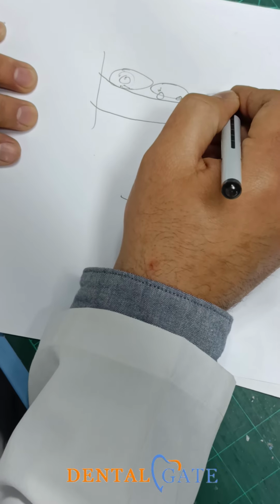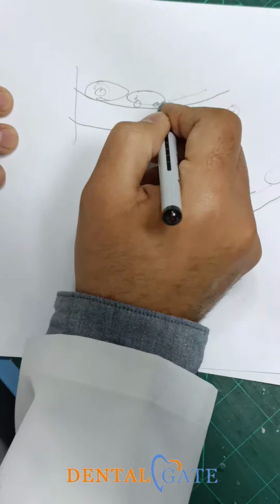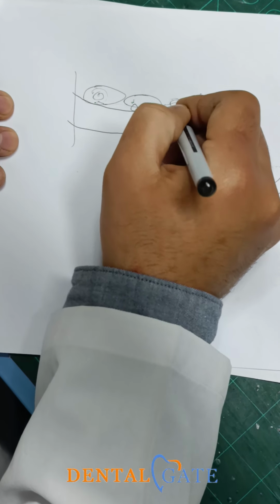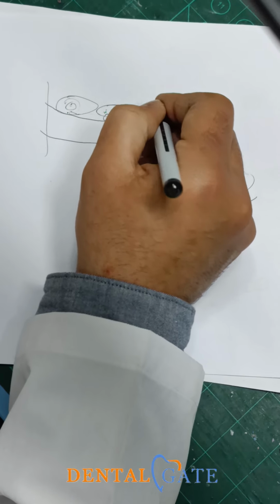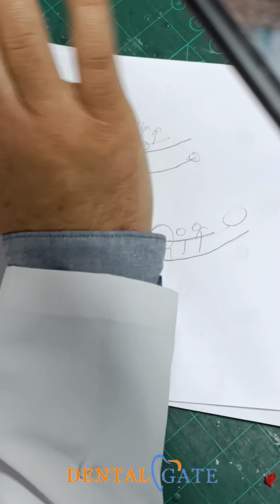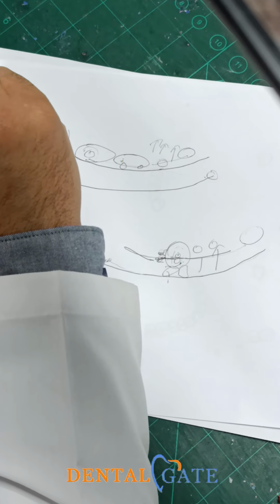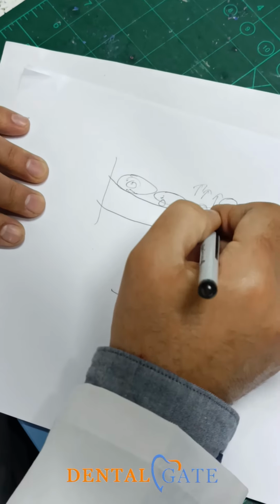We will start toward the maxillary tuberosity, okay? Against the retromolar pad. If I follow this line, I will touch the retromolar pad of the upper. This is impossible. So only the functional cusp touches the table, because it's the biggest and longest one, okay? The other cusps should be arranged toward the palate, not touching the table, within that severe tilt. For the 7, no cusp touches the table, because I will prepare the curve for the lower.